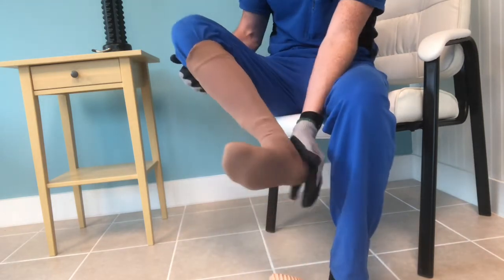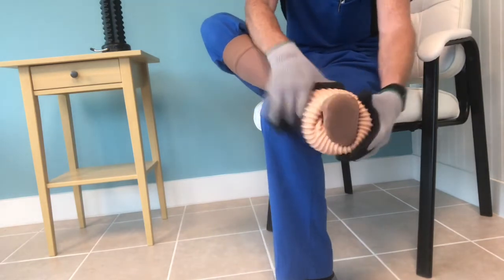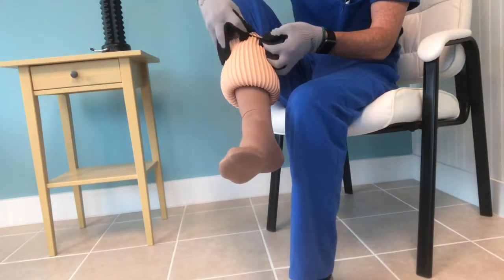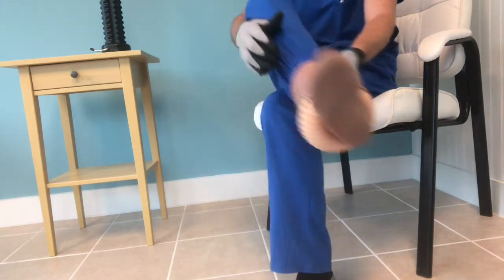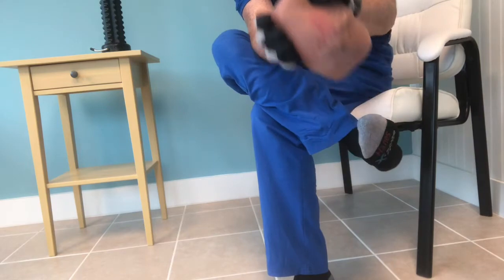As you can see, I never had to fully bend down when I did that. And then finally I'm going to take it off also with the leg up from the floor instead of having the leg on the floor. For the final bit you can cross your legs that way and get support from the other leg.